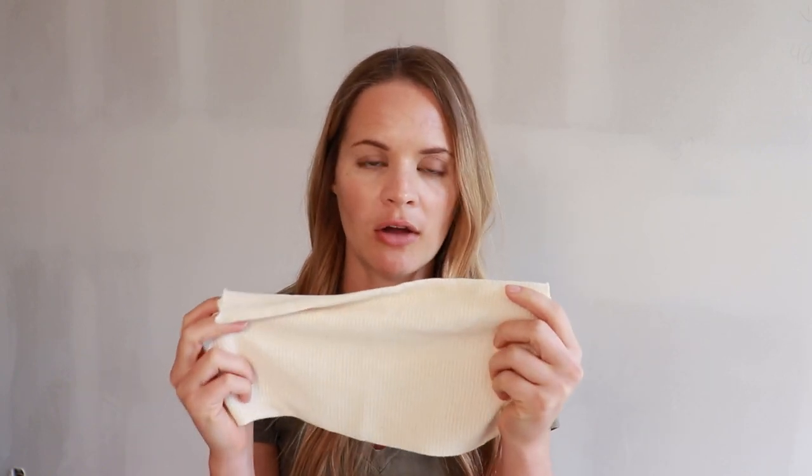The next option is a chip bag. Many people have had one made by their CLT, but basically it's a lot of pieces of foam inside some sort of fabric, liner, or sock — shaped in various sizes and forms — that you put against your skin or a stubborn swollen area and wrap over the top. The thicker part gives you more compression to help shrink faster, and the little chips are also meant to help break up fibrotic tissue. What I typically do is keep all my scraps of foam, cut them up into little squares, use some sort of liner, and shape it to whatever size or shape I want.